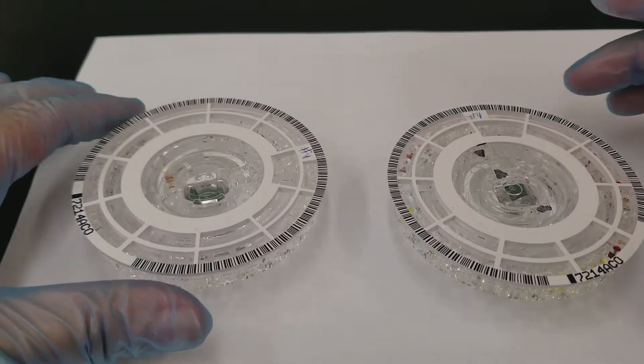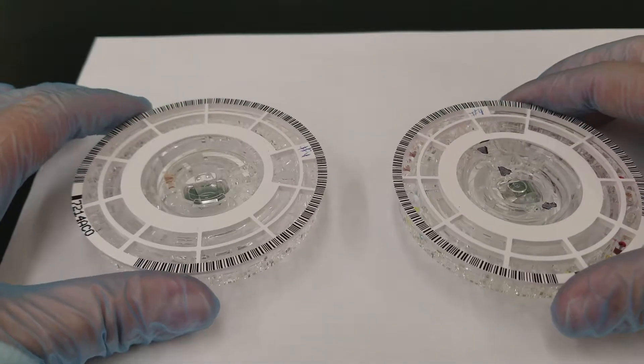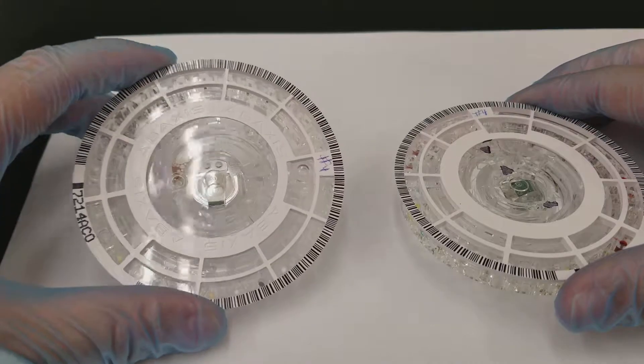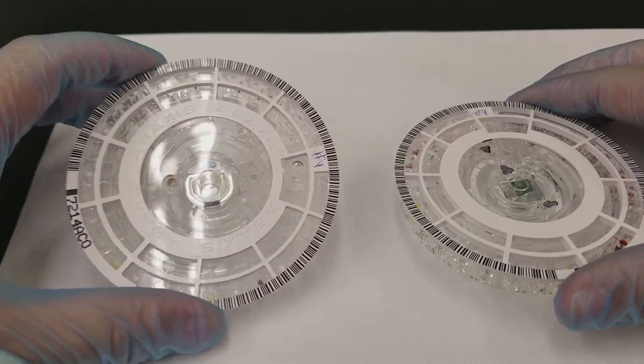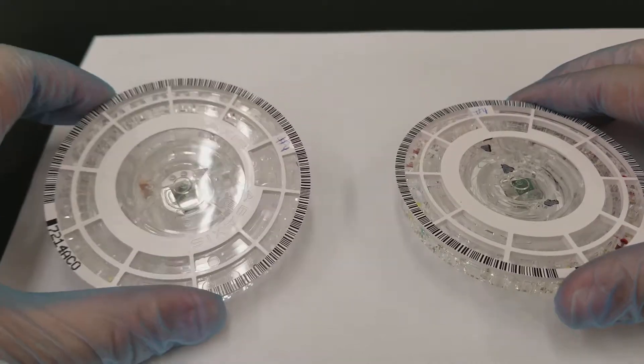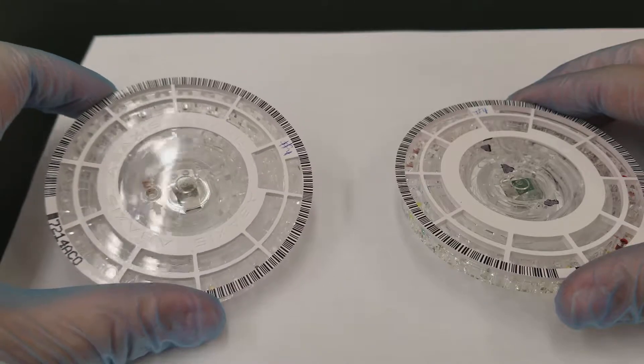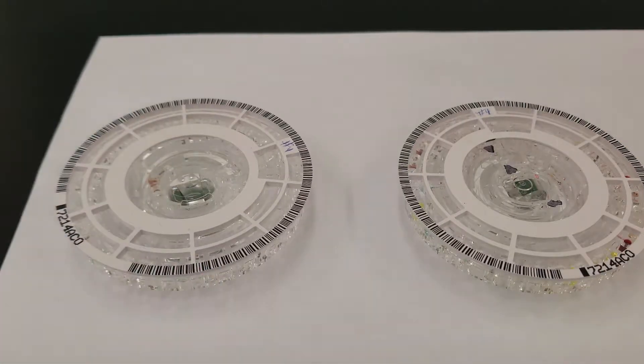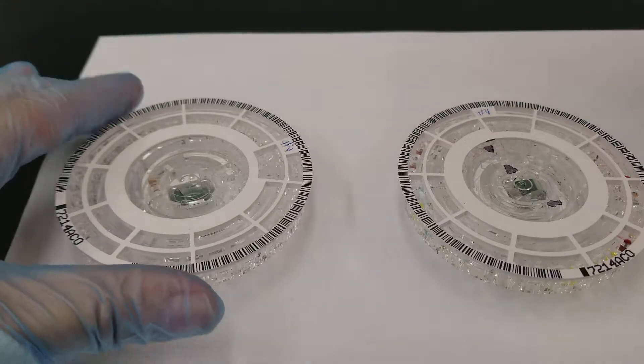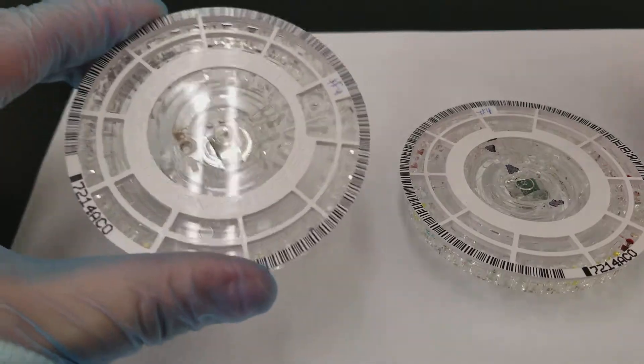Hey everyone, today I wanted to respond to some feedback that I got from my students. When I did the video before about filling the piccolo cartridges, they said they had a hard time seeing the arrowheads in order to see where the fill line was and also where you actually put the specimen in.